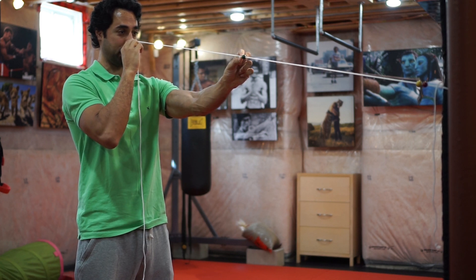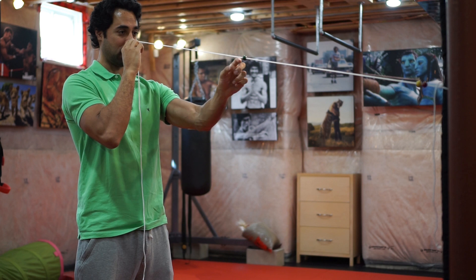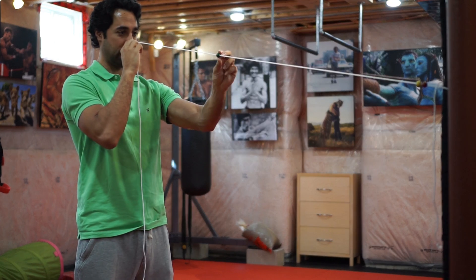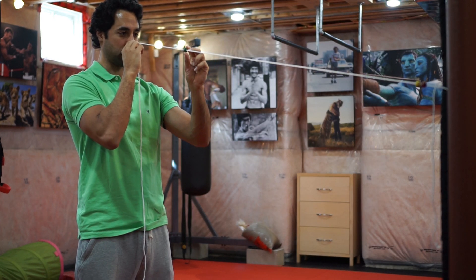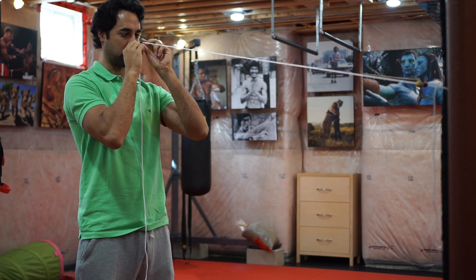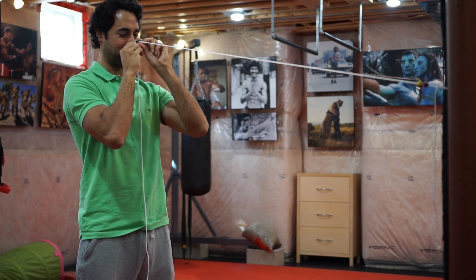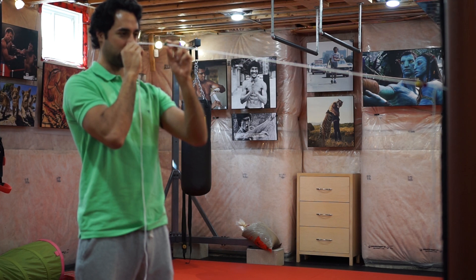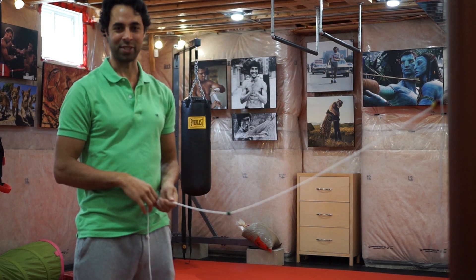Just slide it, let it come, and right where you feel that tension, that's when you stop and hold it for a bit — 10 seconds or so — then slowly bring it back out. The X where the strings meet at that green dot will elongate as you move the bead away and constrict as you bring it closer. You'll feel your eyes starting to cross — I can basically bring it to my nose since I don't have a concussion — then slowly bring it back out. And that's the Brock String exercise.